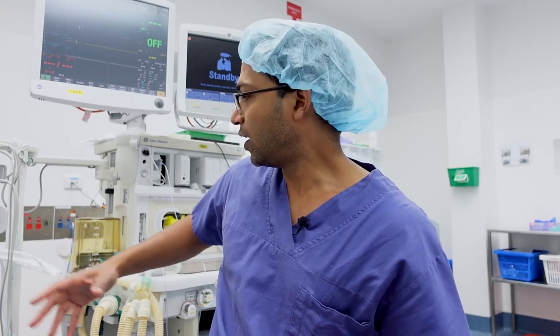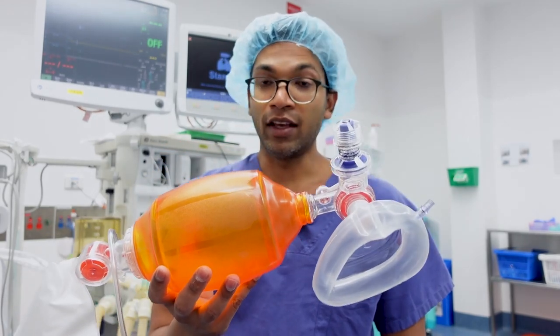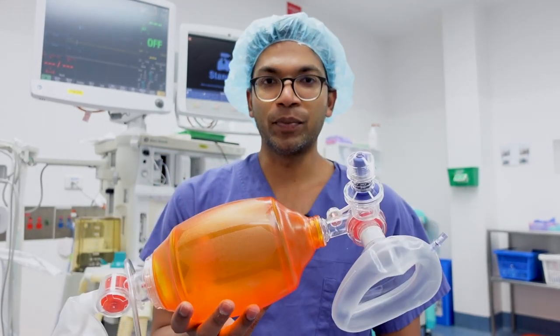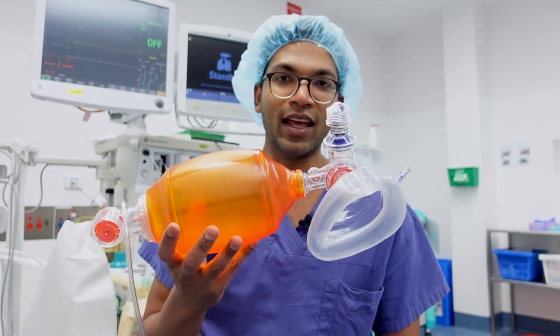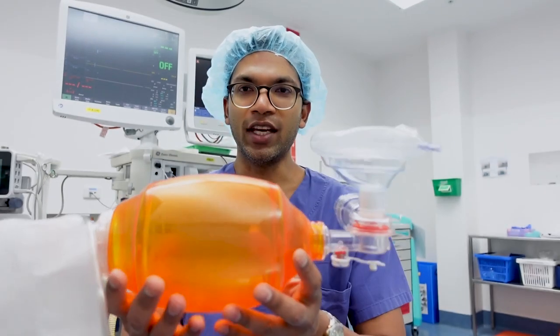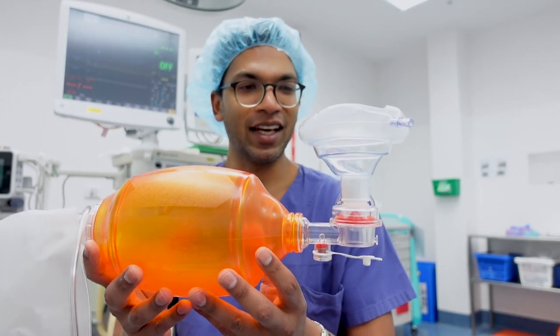If all of my piping failed, if the oxygen failed, if the machine failed, if there was a problem with the circuit — any part of this there's a problem with — this can essentially solve that problem in the immediate term. I can solve it for a short period of time and therefore keep the patient safe and alive. So let's go through each aspect of this Air Viva or Laerdal bag.